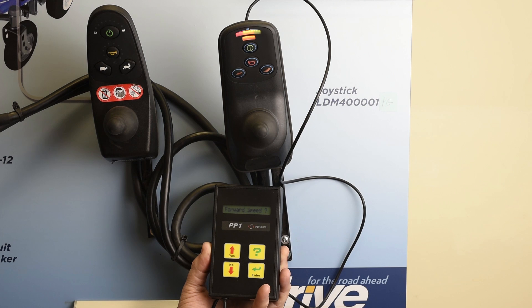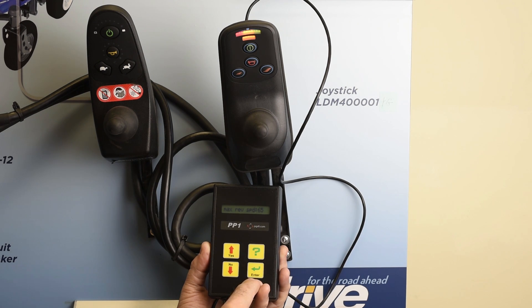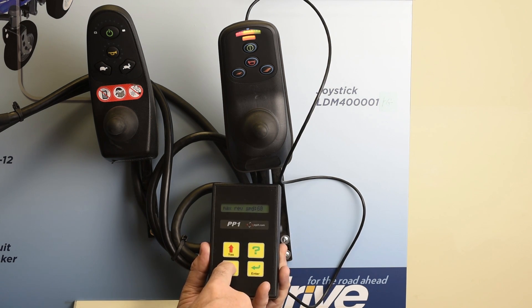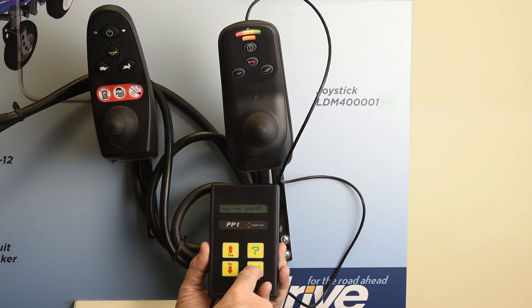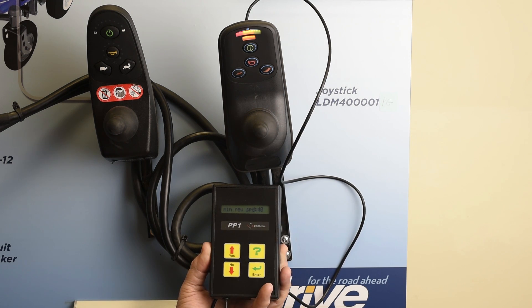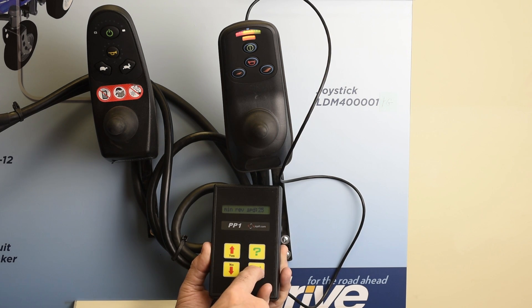Now we go to the reverse speed. We see that the maximum reverse speed is set to 65, which is going to be very fast — we don't want that. So let's bring it down to about 45 and hit the enter button. You chose 45. Now for the minimum reverse speed, we want a bigger differential because 5 percent isn't very much, so let's go down to about 25 and hit enter.